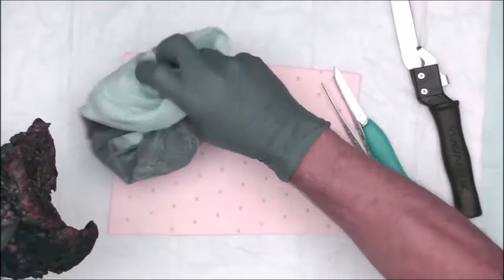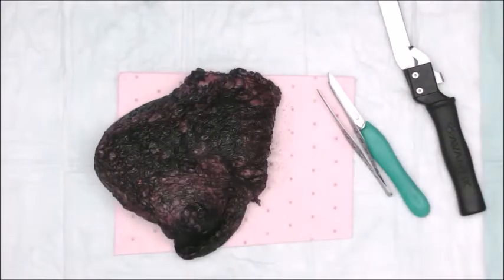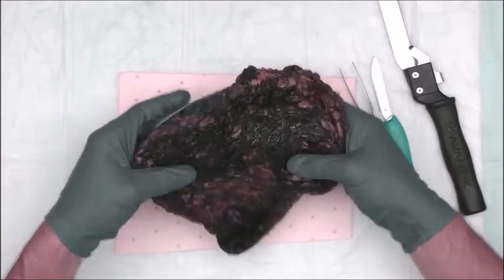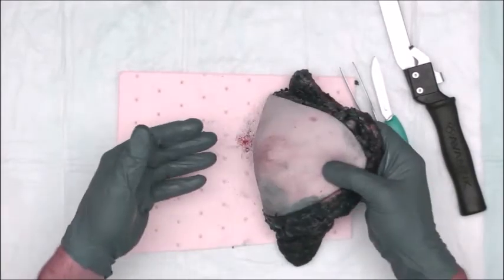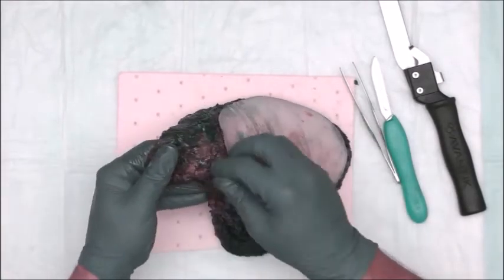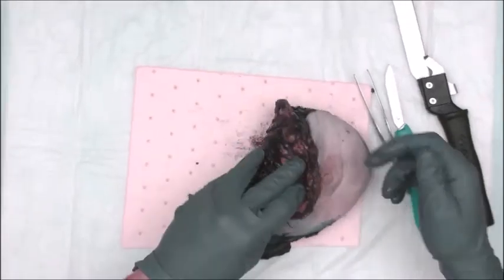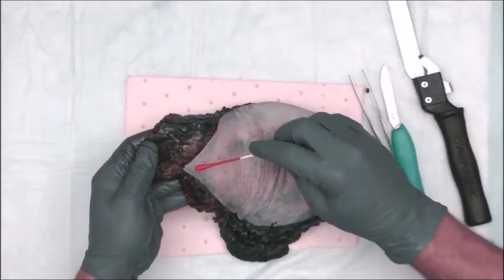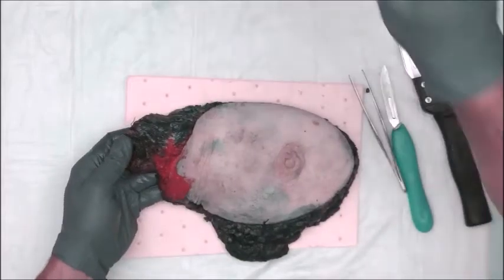Now, depending on where you work and where you are trained, some people will section the breast anteriorly. Some will do it posteriorly. The way we do it is posteriorly. Before I begin sectioning this, if you recall, I inked the anterior blue, the deep black. I want to put a little bit of red ink over the lateral aspect here, in case I have to go back to it. Okay?